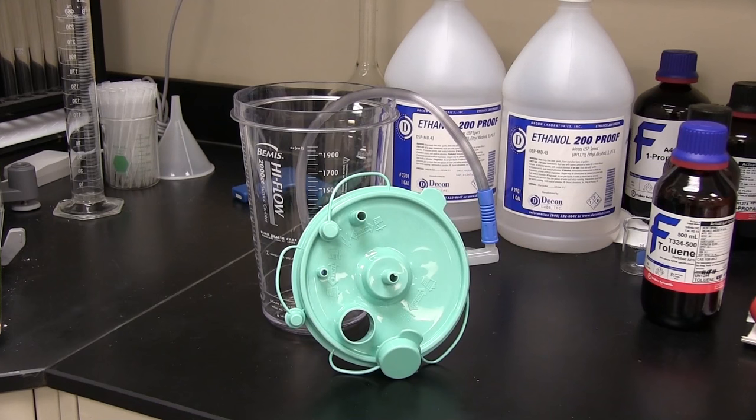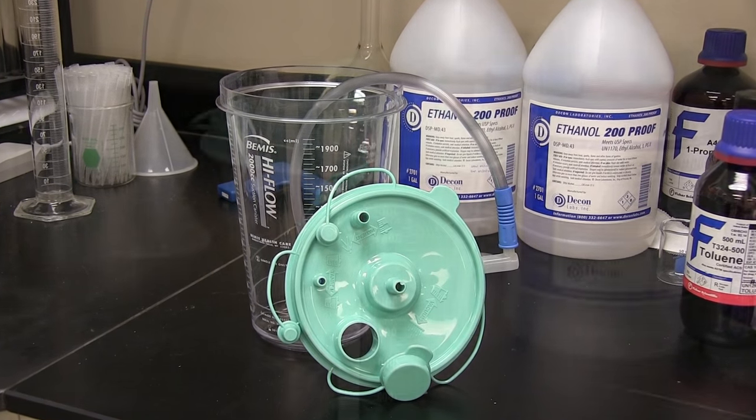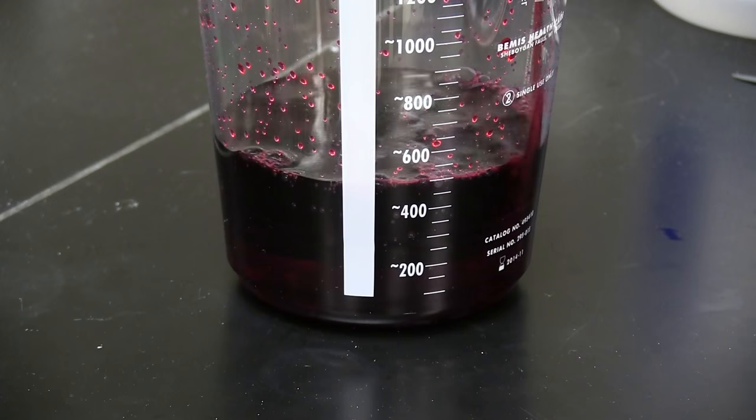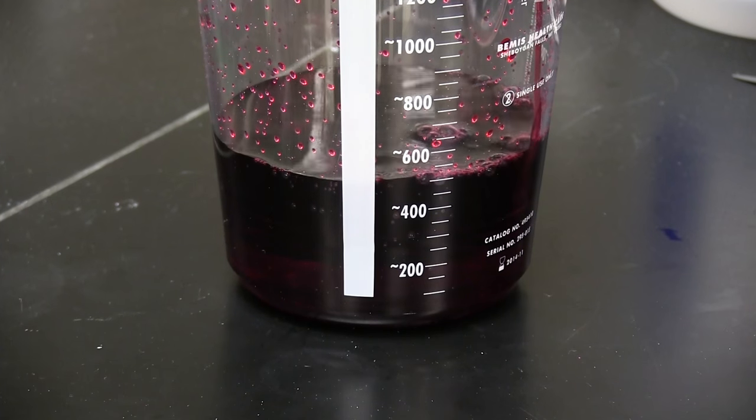For the fluid control solidifier bottles, it is important to understand that there are single and multi-dose bottles for use in suction canisters, urology bags, and kick buckets.